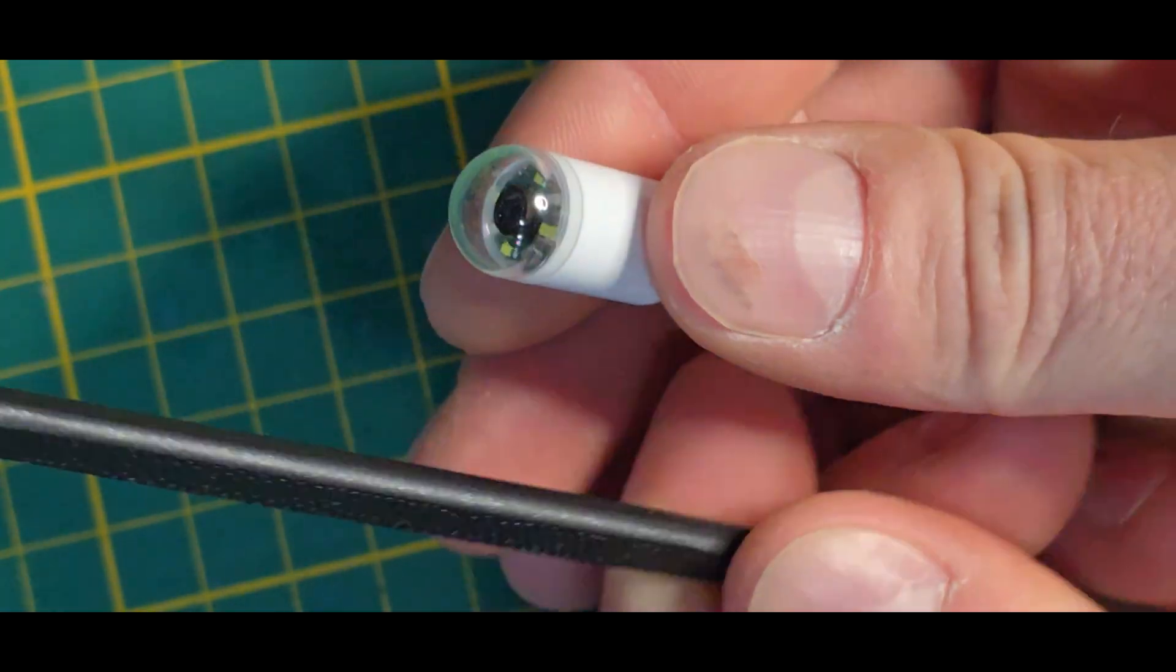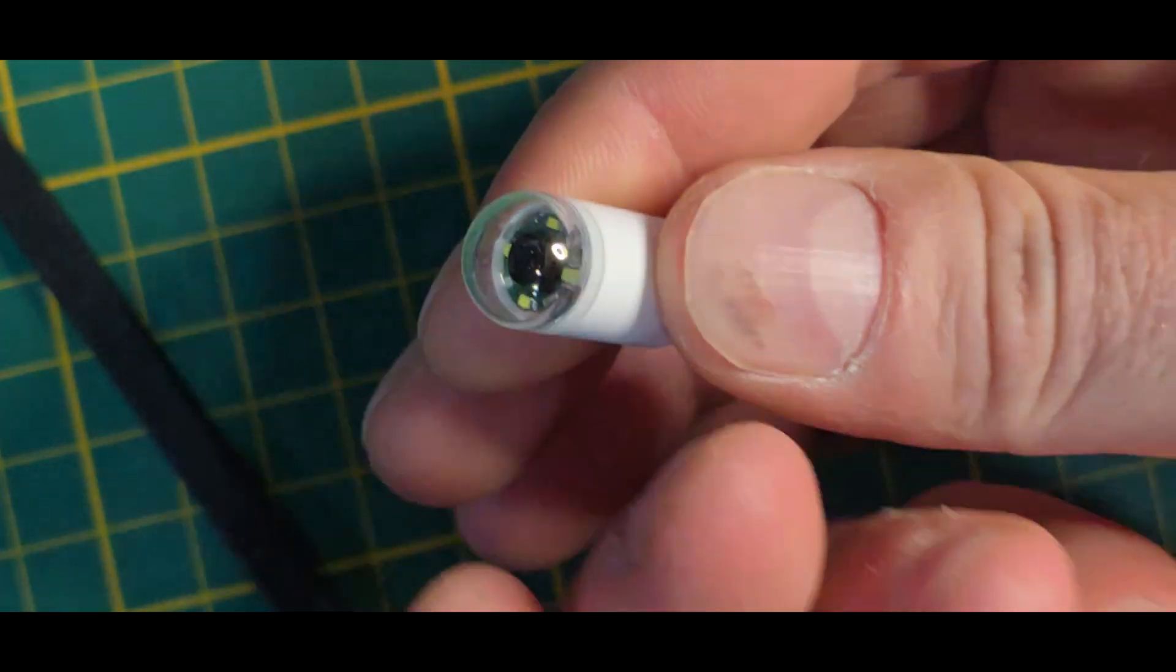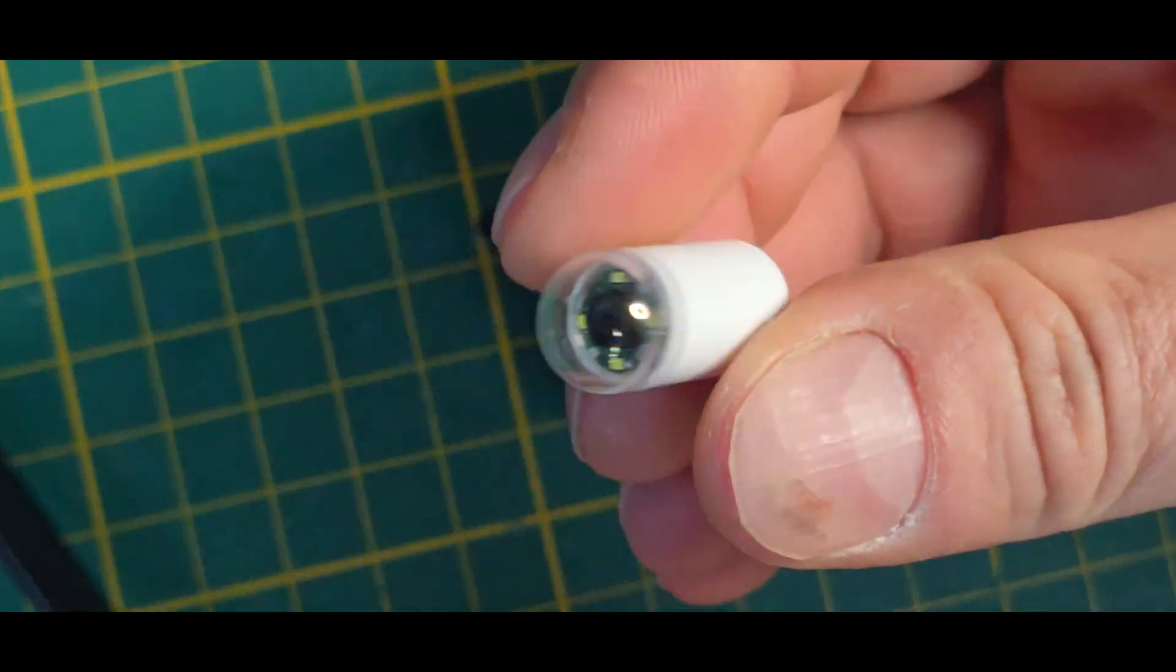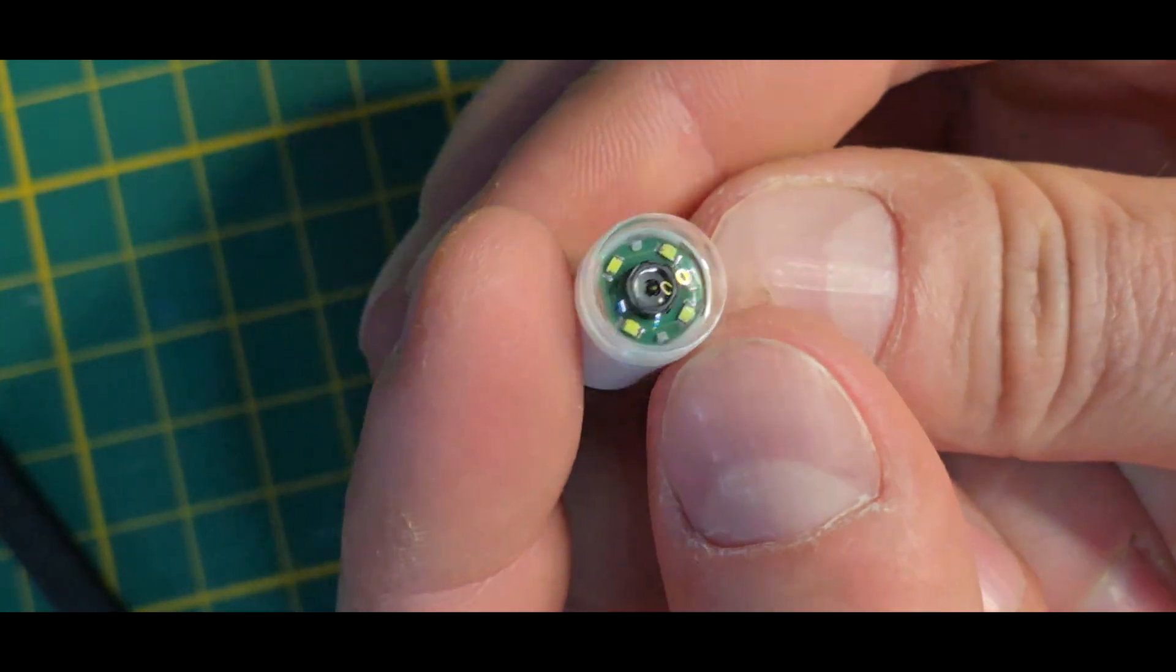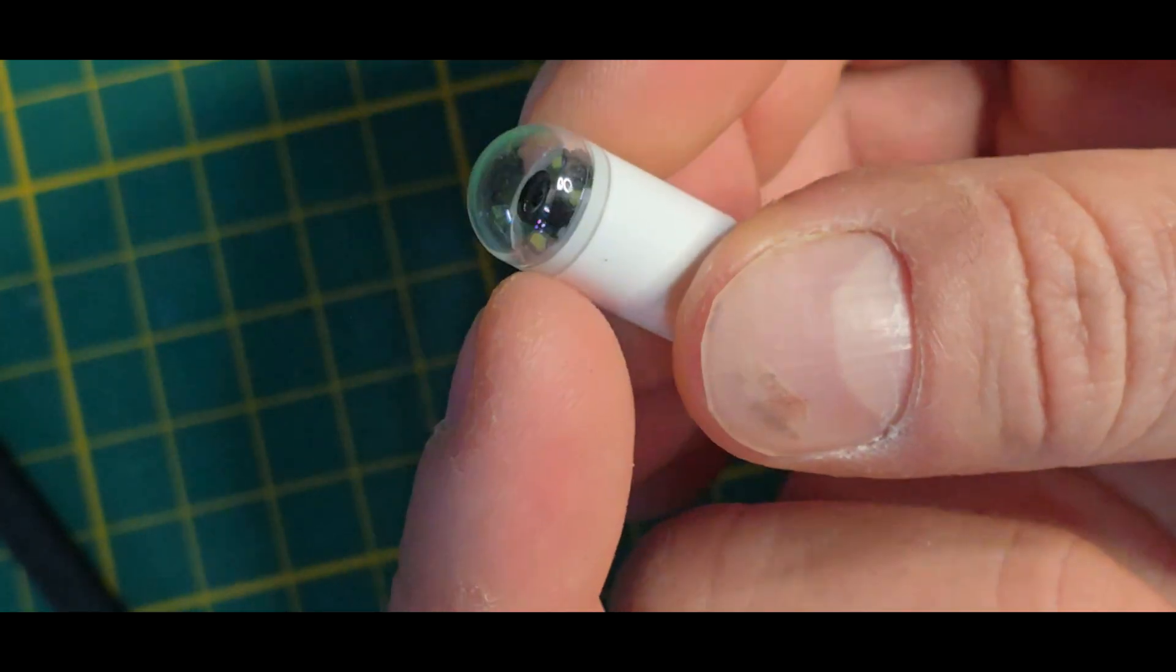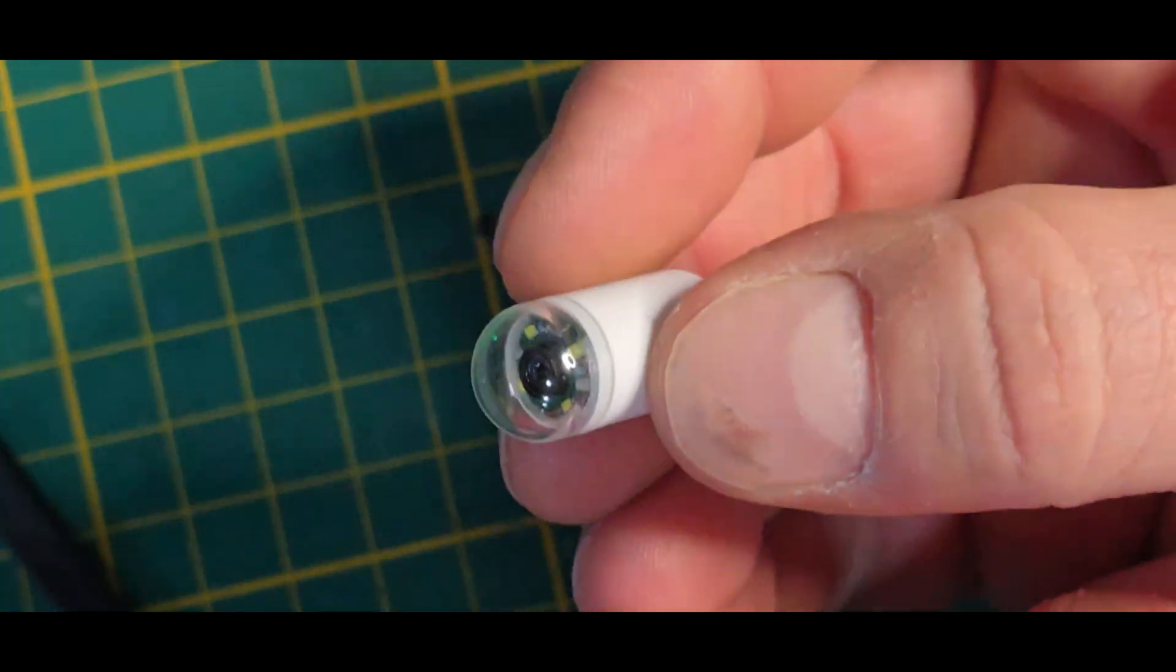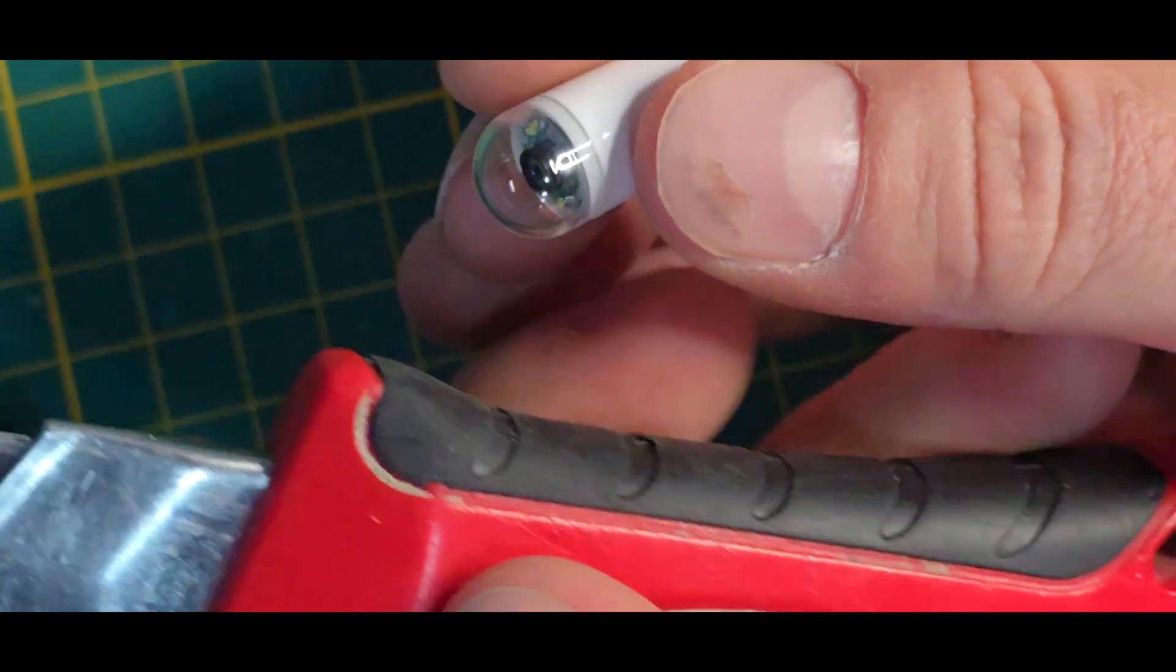I saw that some of these cameras are turned on by a magnet on the outside or activated that way. But if it has a magnet all around itself I'm not so sure if this would work because I mean it's totally enclosed and somehow they need to be able to enable it. But first I would just try to cut here at the top and remove basically the dome at the front and let's see what it will look like.